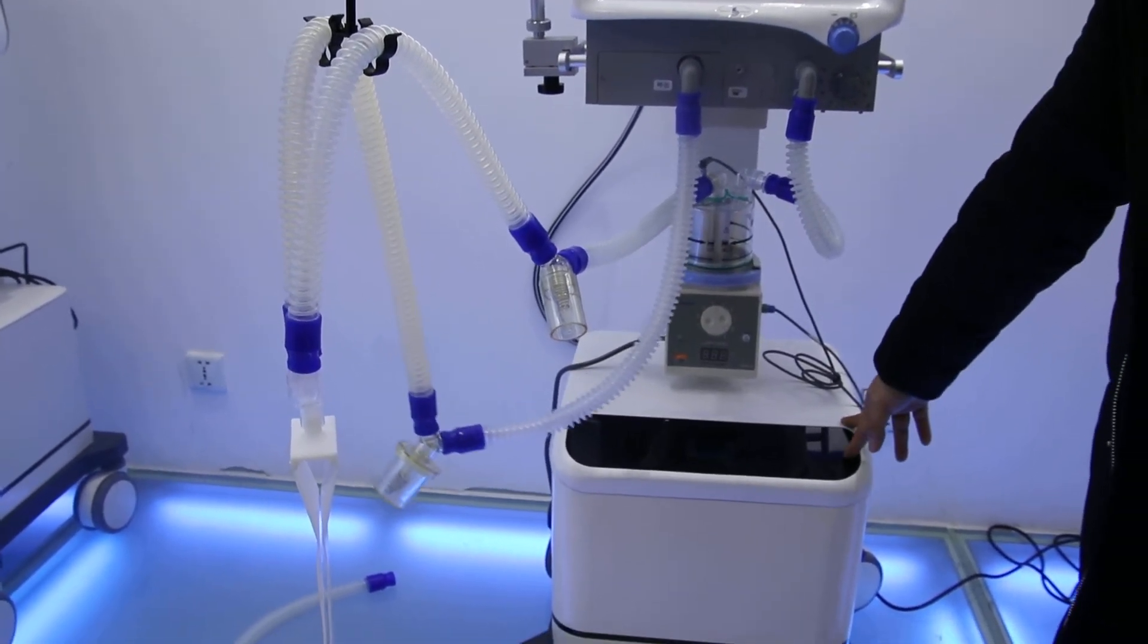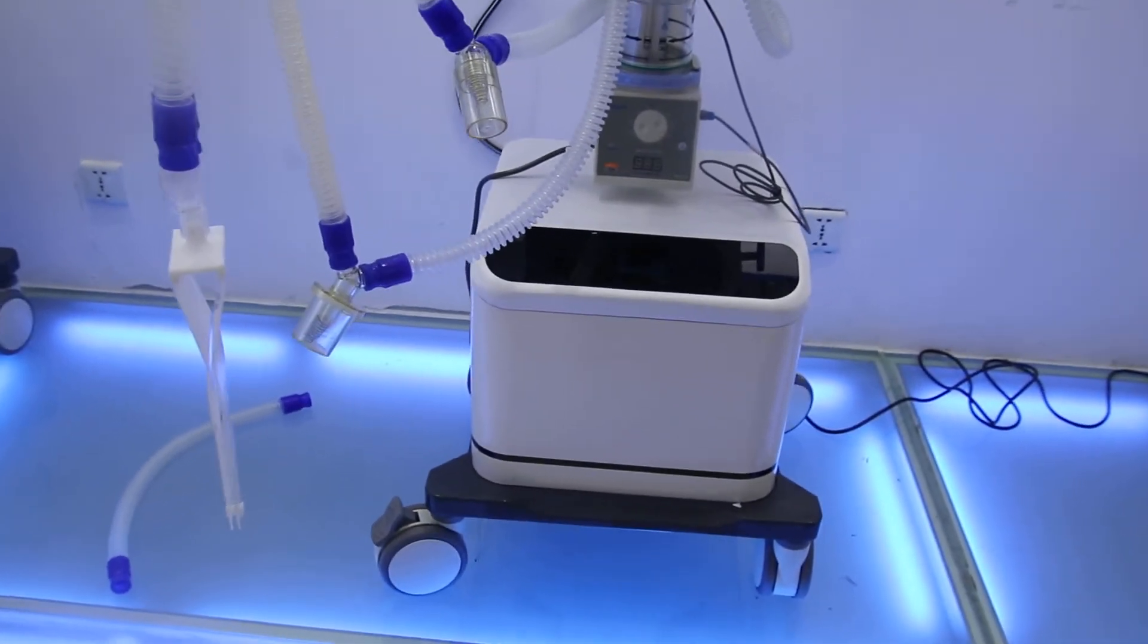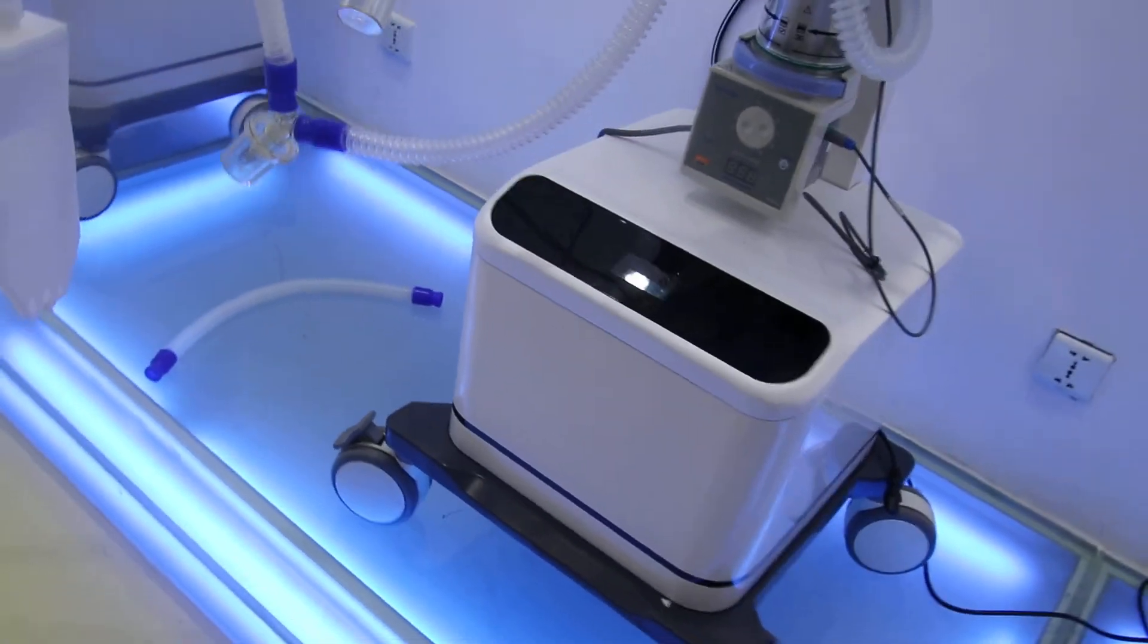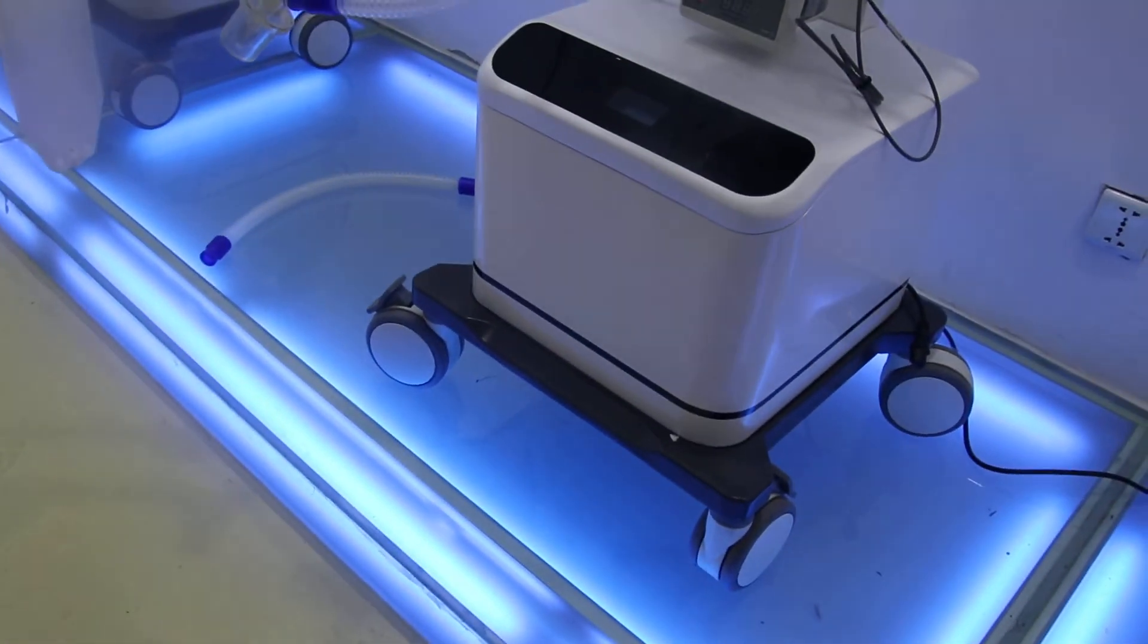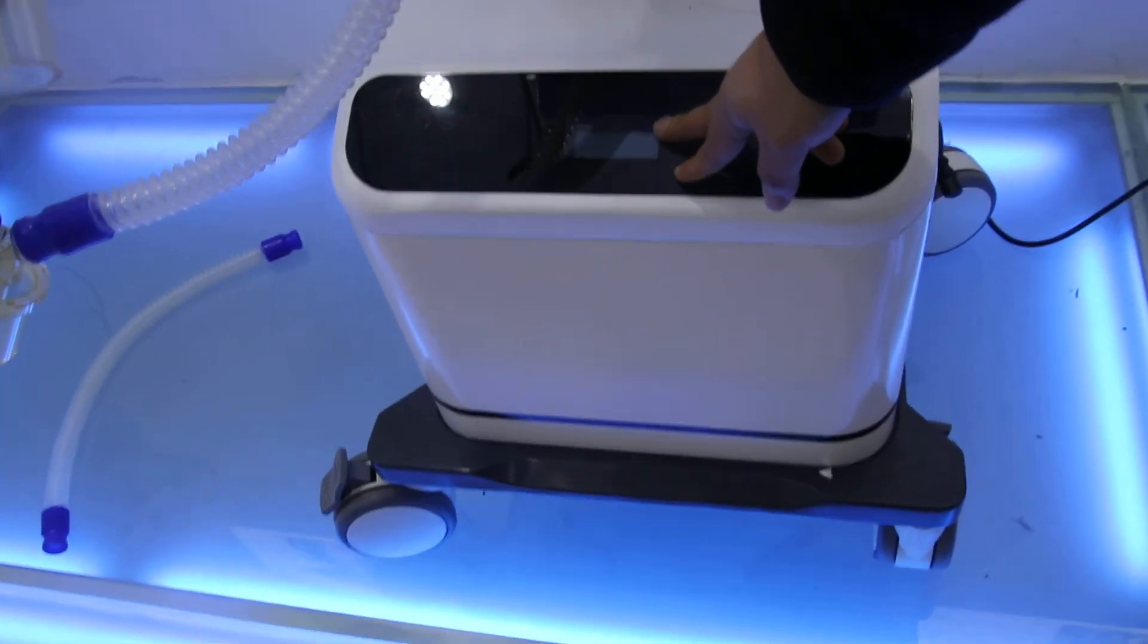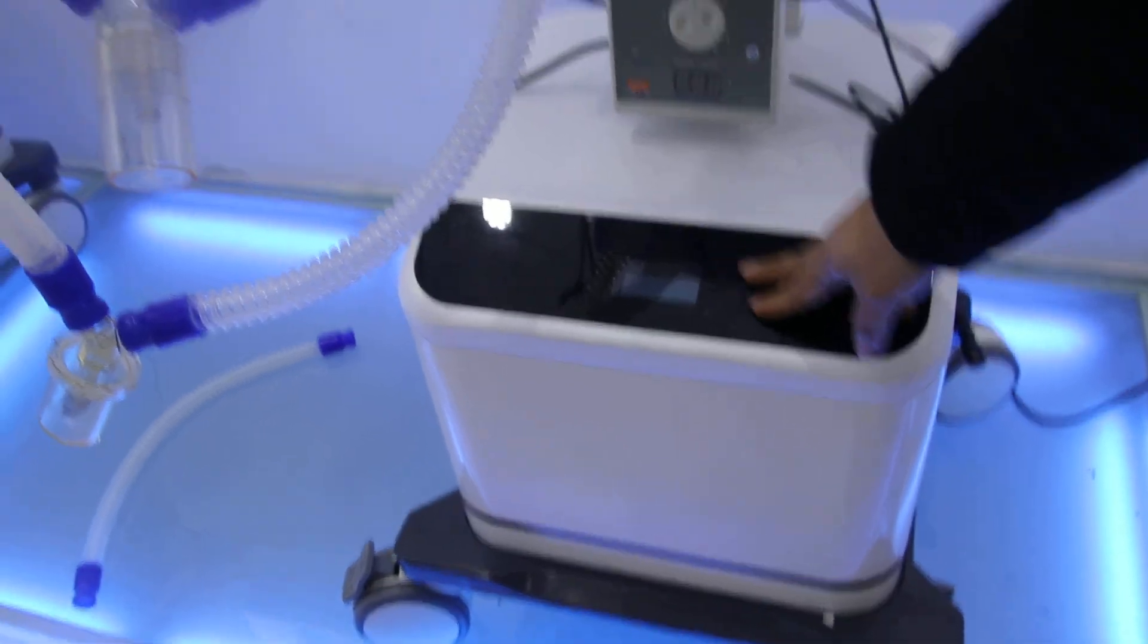And then it will be our air compressor. For this air compressor, our compressor is the best known in China because of the noise. Our noise is less than 40 dB. And also you can see on the middle side of the screen it can show the parameters digitally with the history using time and also the input pressure.